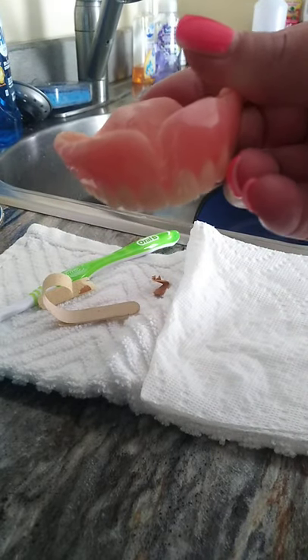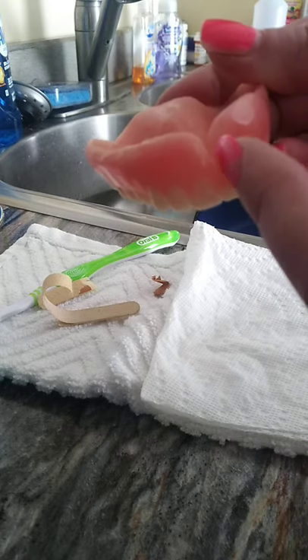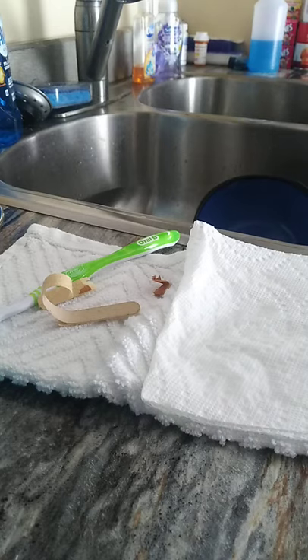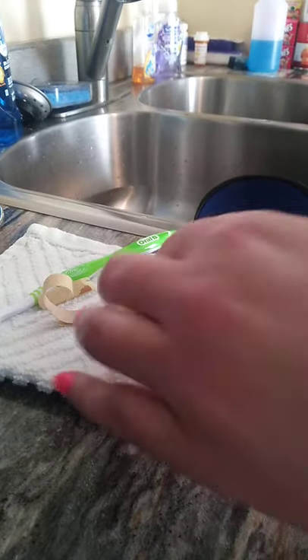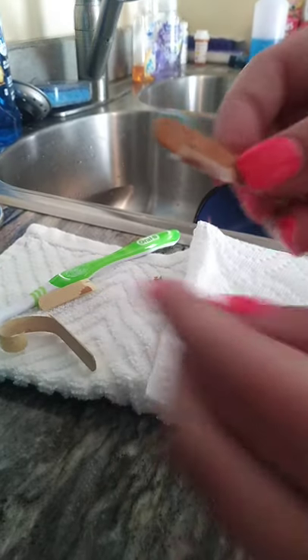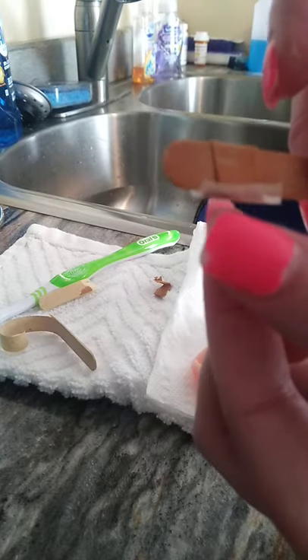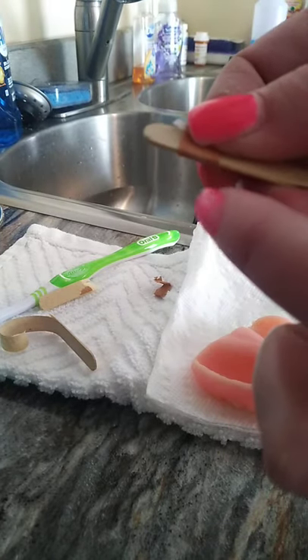What I'm doing is trying to get into here. A normal nail file doesn't have the graded sandpaper on the side entrance, so I actually did it myself. I don't know how much you guys are going to be able to see since I'm trying to do this handless. So what I did is I took apart a regular tiny cheap nail file, took the sandpaper part off of it, wrapped it around this spot, taped it in one little section, and it gave me this right here.